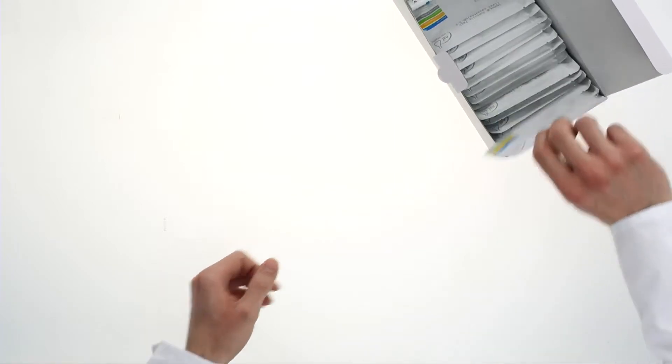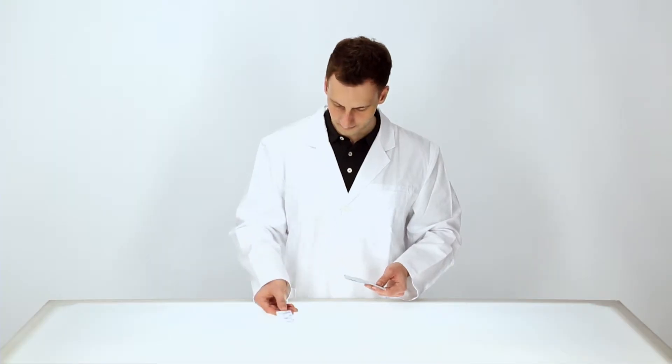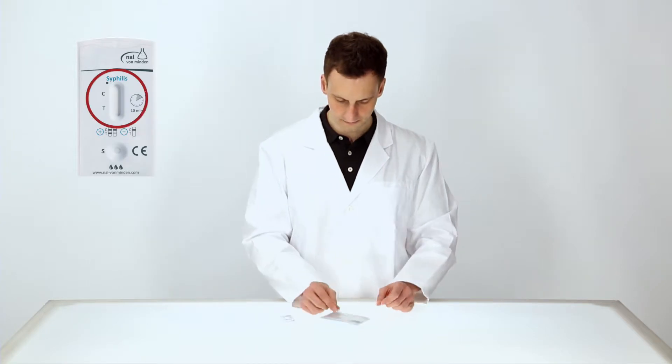Do not use tests with damaged pouches or beyond the stated expiry date. Use the test immediately after removing it from its pouch and do not touch the result field.